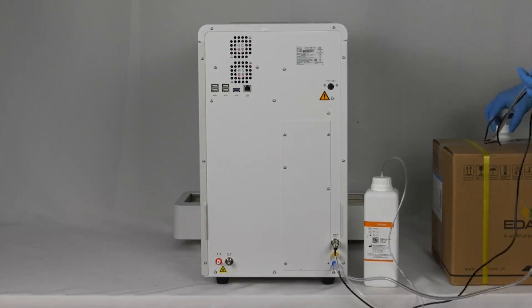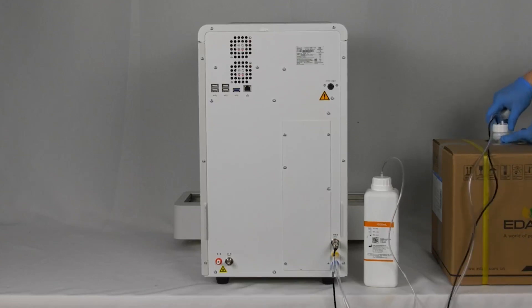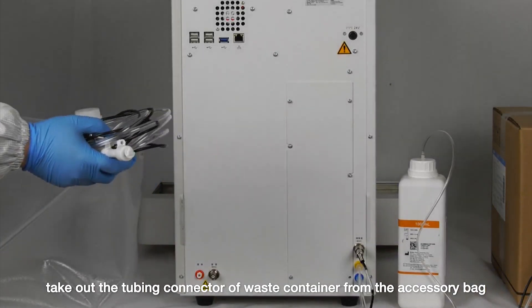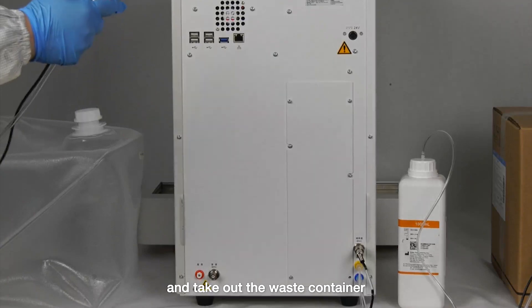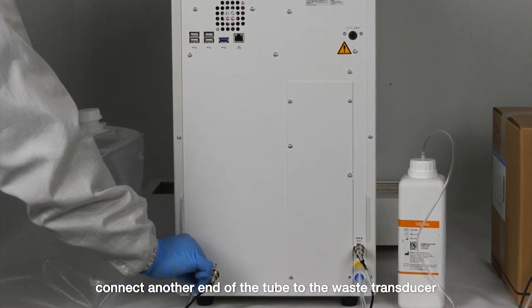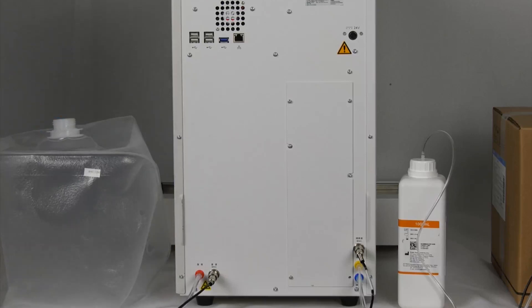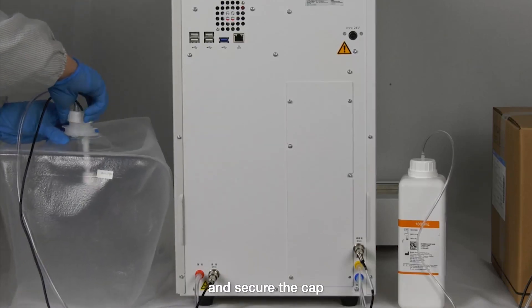Take out the tubing connector of the waste container from the accessory bag and take out the waste container. Connect one end of the tube to the waste outlet and connect the other end of the tube to the waste transducer. Open the cap of the waste container, insert the opposite end of the tube into the container, and secure the cap.